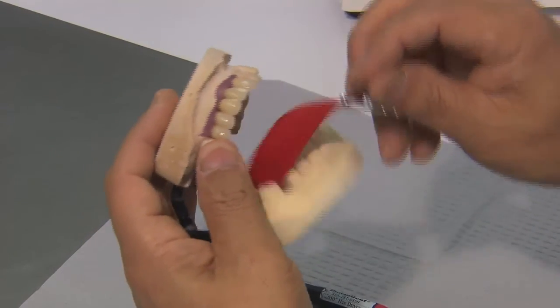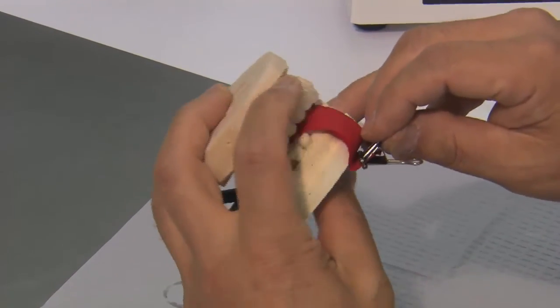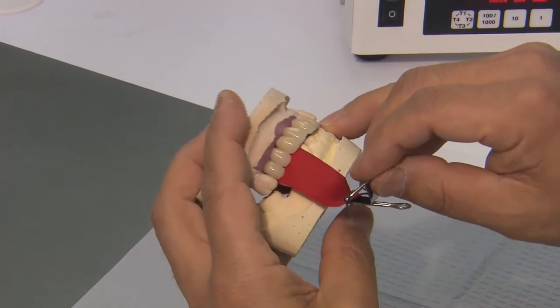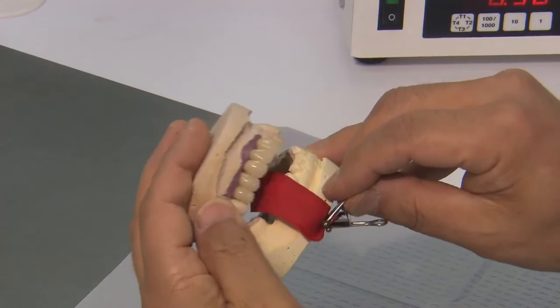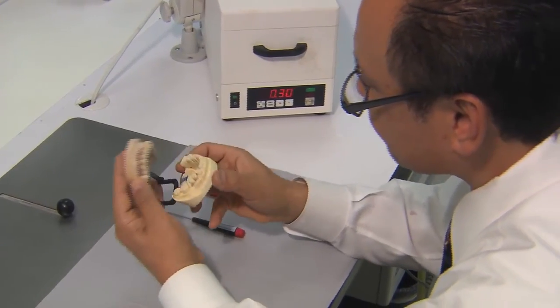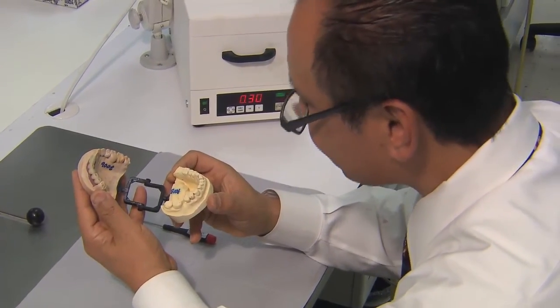Now that the fabrication process is complete, our team performs a final quality control check to ensure an accurate bite, margins, shade, contours, and adherence to any special instructions provided by the doctor.